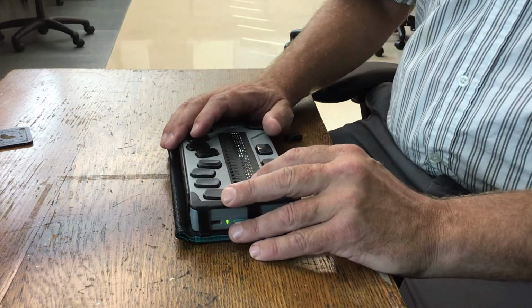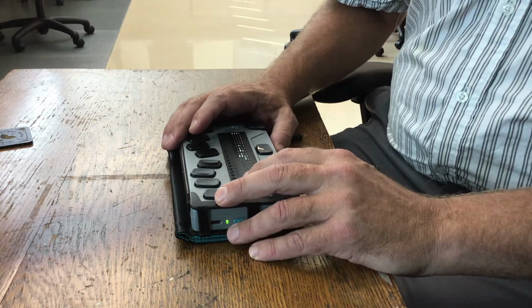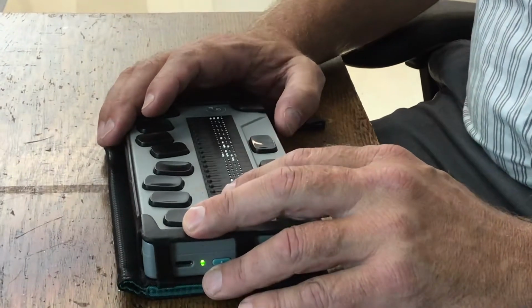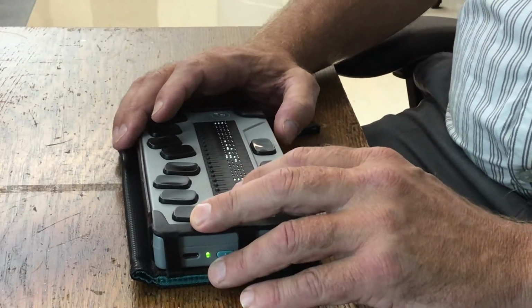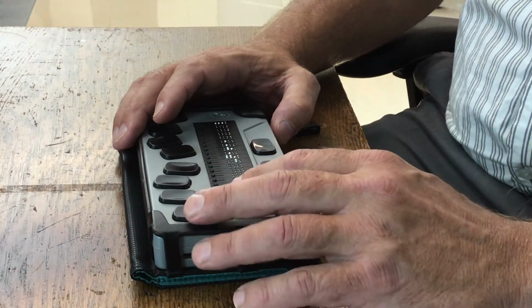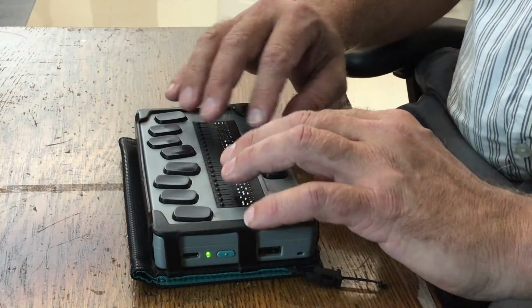This is another how-to video, and we're going to talk about the Chameleon today. Most of the students, the Braille students, are using that as a Braille display. There are a lot of other features that you can take advantage of using the Chameleon as well, and I wanted to talk about some of those. But first, just an overview of what the Chameleon is and what it does.